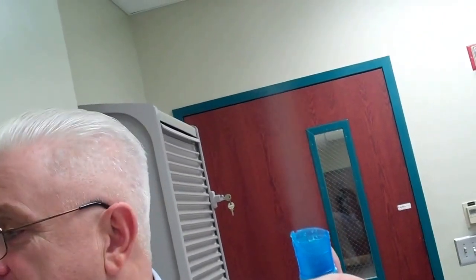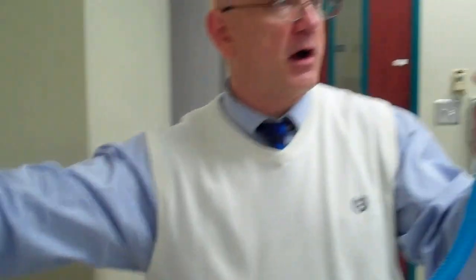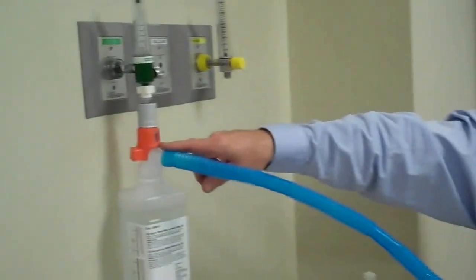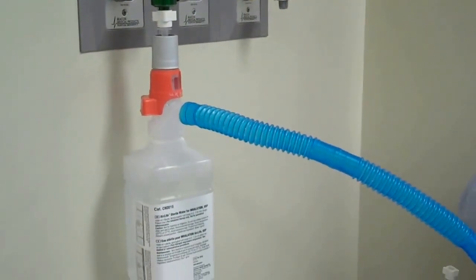So that water builds up in the corrugated tubing, causes back pressure. And I visibly showed you that even the aerosol that's being created — the large particulate molecular water that's being put in the gas stream — is actually coming right out of the air entrainment port and spitting out.